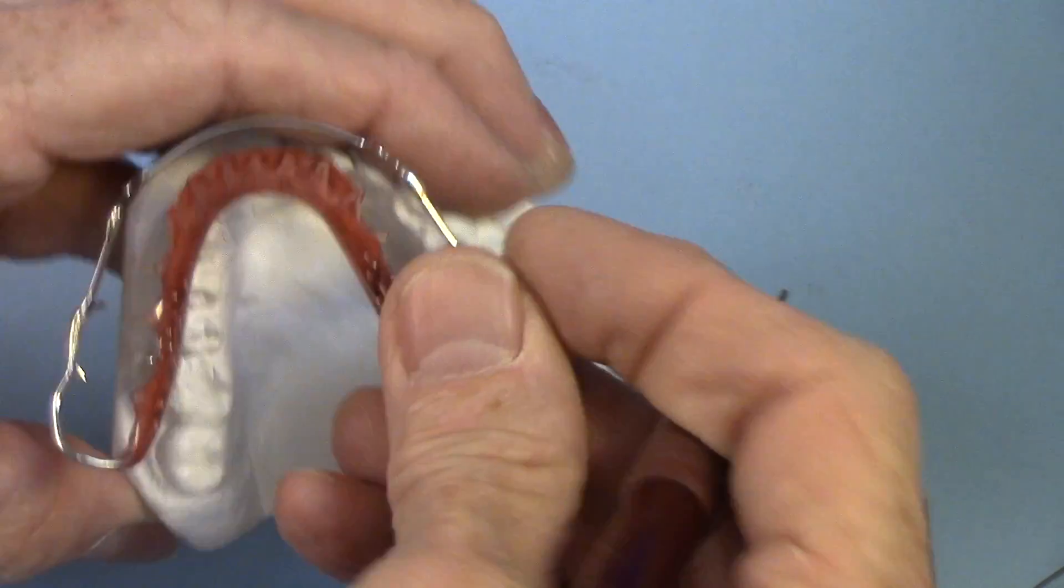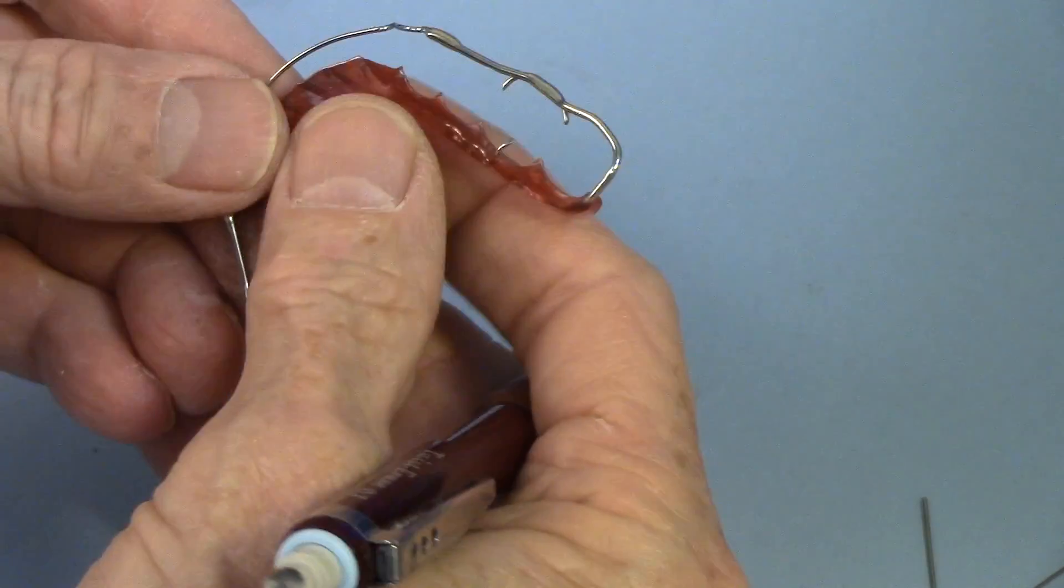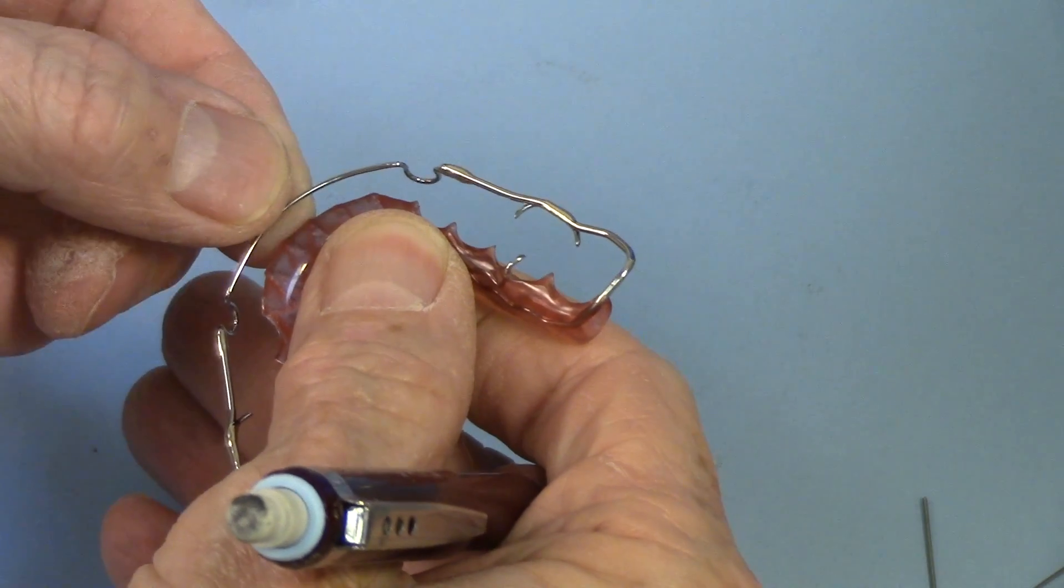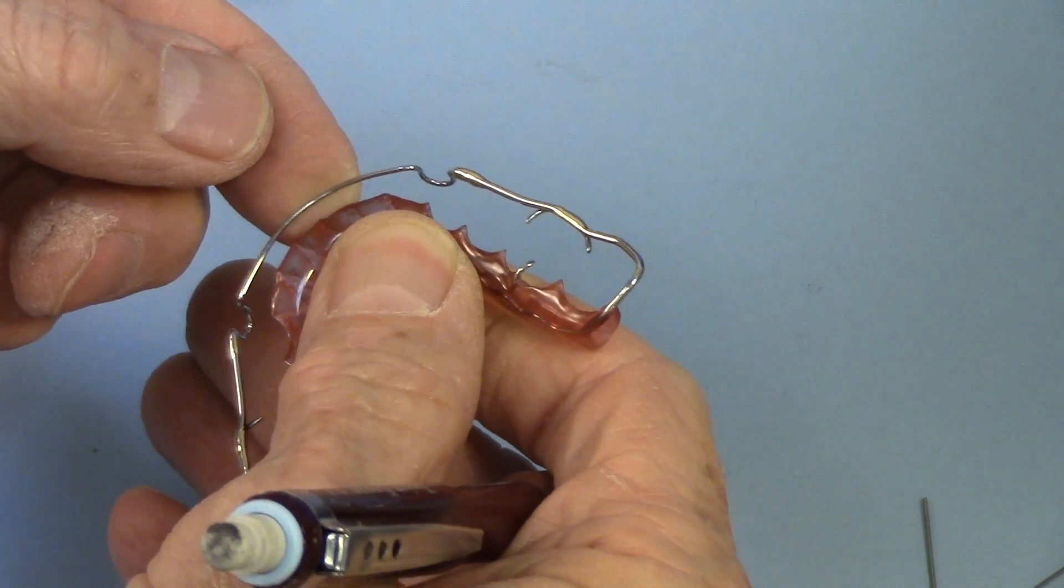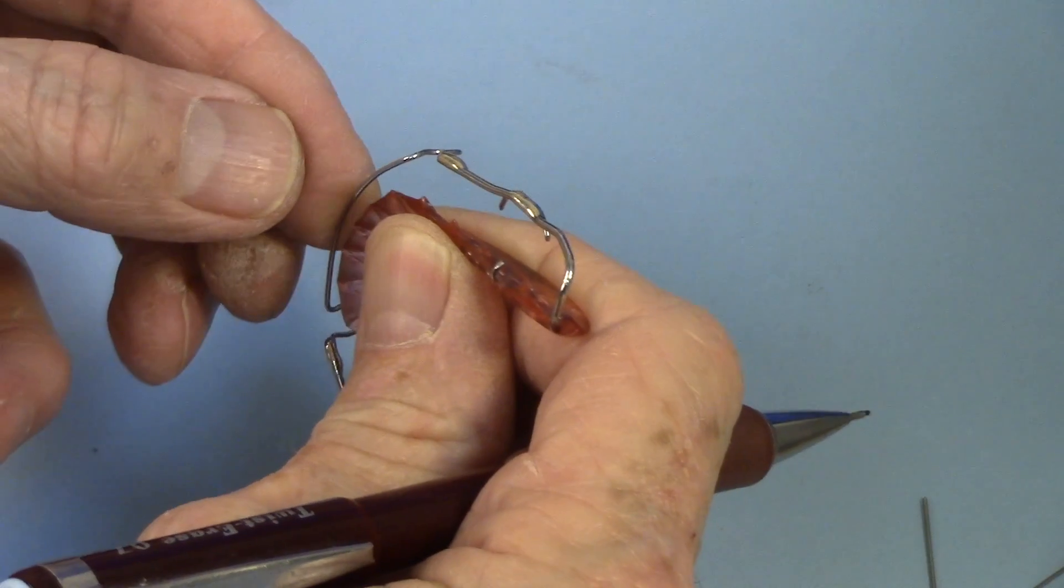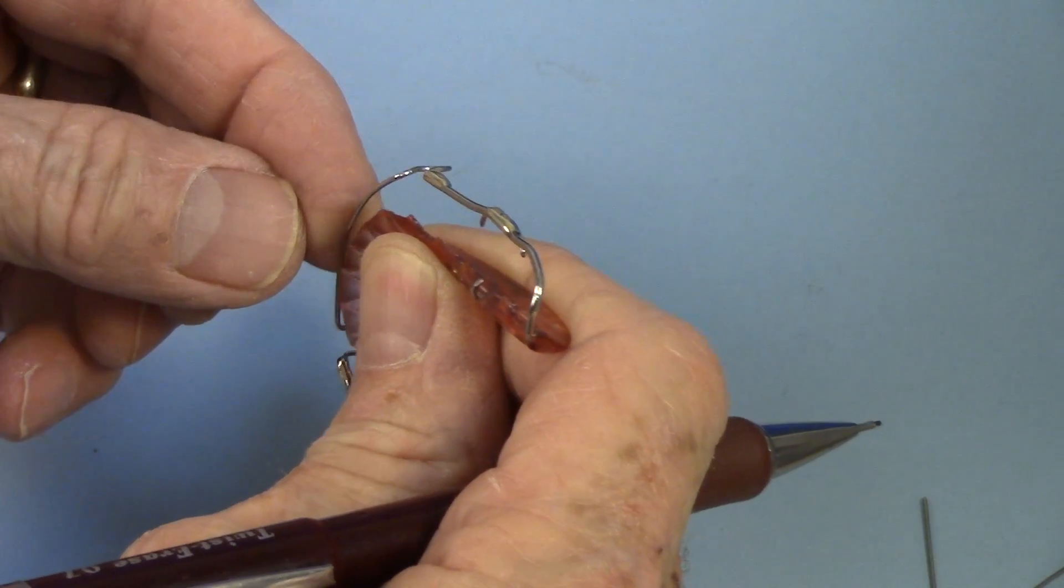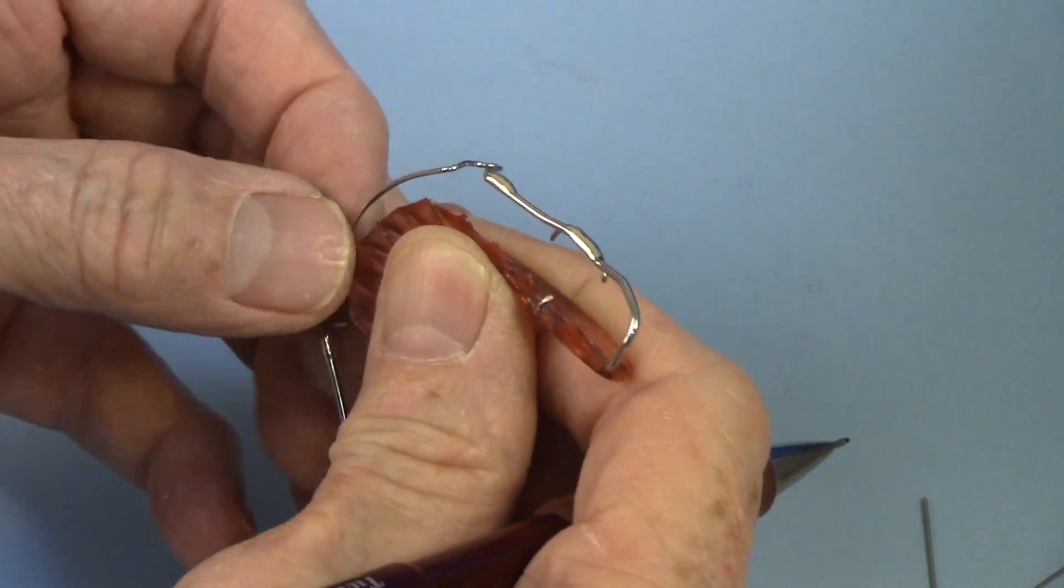But look at this. Because of that hard tempered wire, you don't have hardly any. I mean, it's not soft. It's very hard. And it's very durable. And it holds that wire into place.